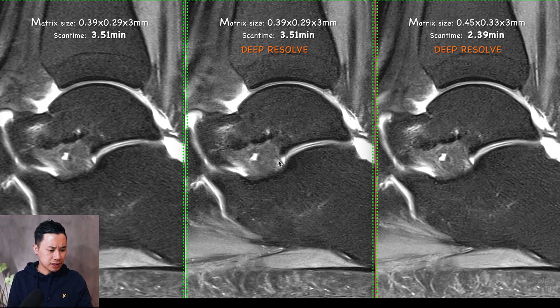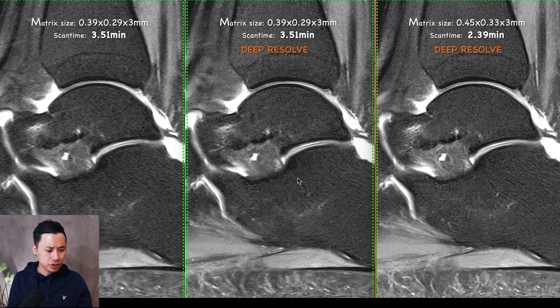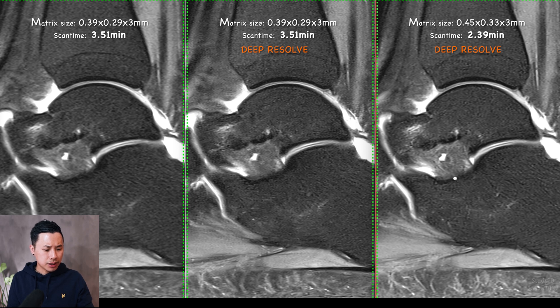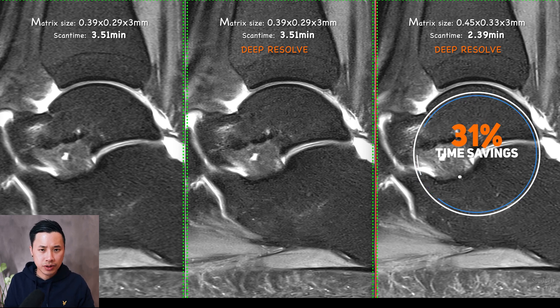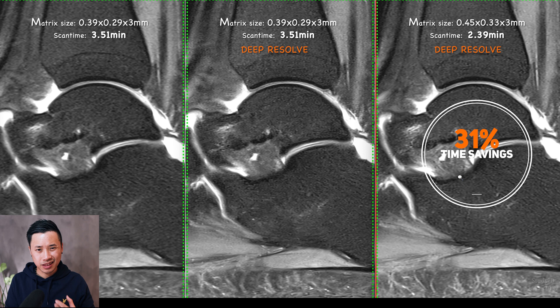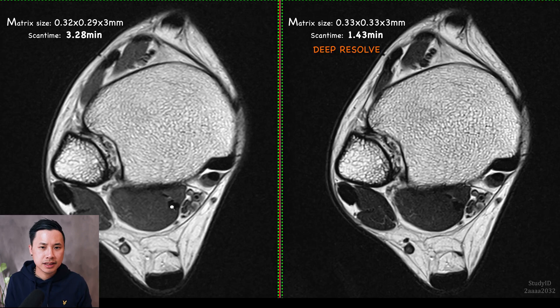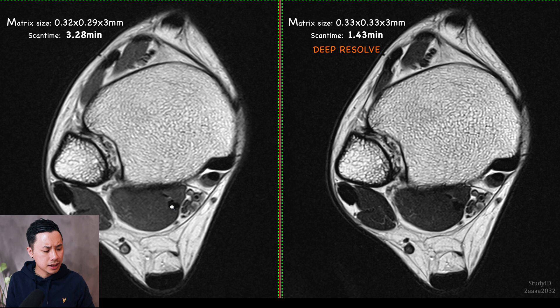It looks almost like the one in the middle where you have a higher resolution. So here you save around 31% of scan time, just by adjusting the sequence settings. I also did a T2 transverse test as well.